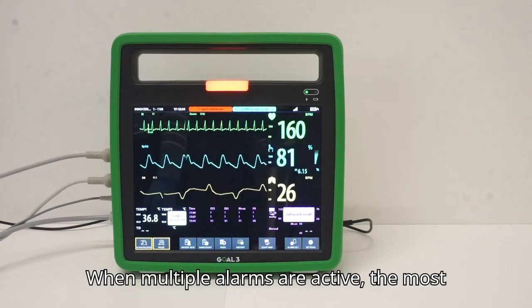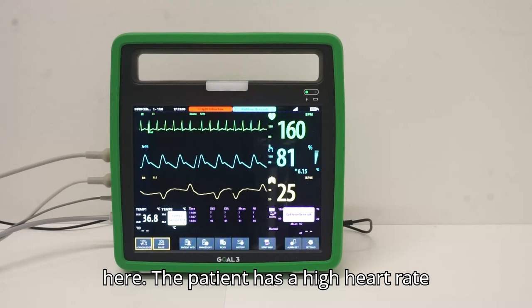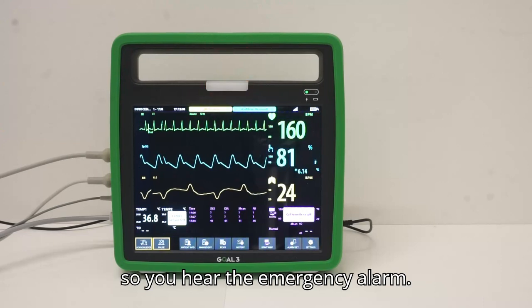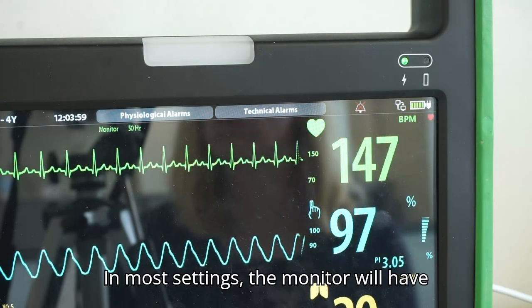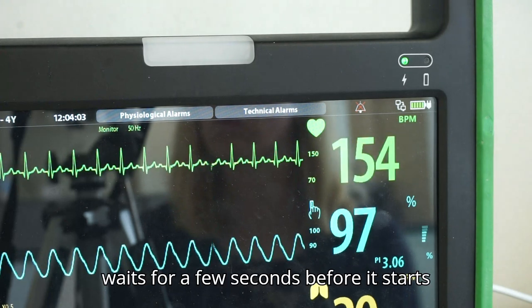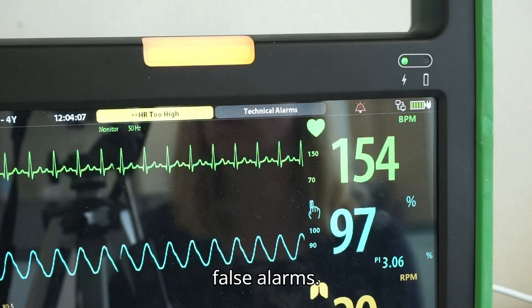When multiple alarms are active, the most important alarm is audible. Like here. The patient has a high heart rate and a critically low oxygen saturation. So you hear the emergency alarm. In most settings, the monitor will have an alarm delay, meaning that the system waits for a few seconds before it starts to make sound to reduce the number of false alarms.